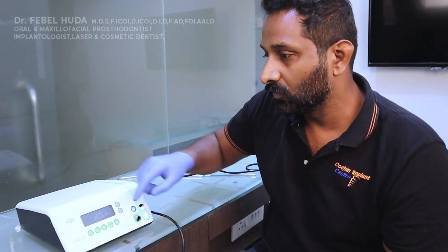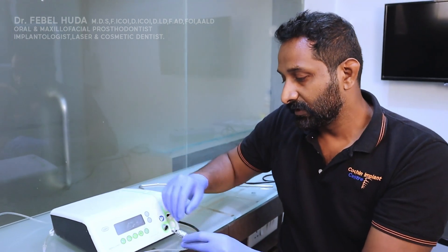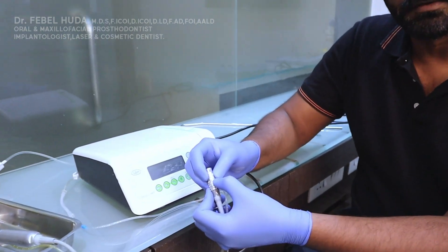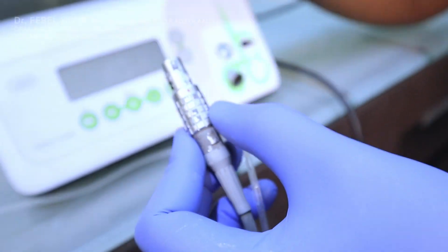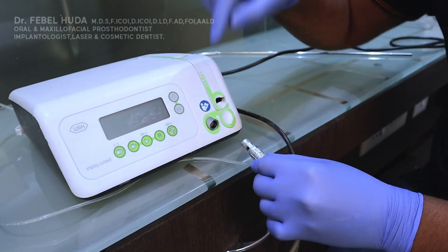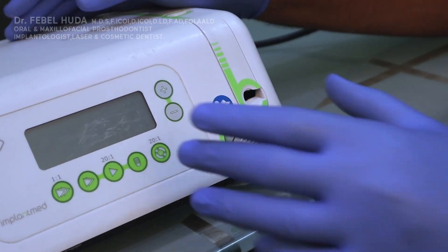On this side you have two components that connect. First is your handpiece cable. You can see there's a red marking on the handpiece cable, and a corresponding red marking on the port — you coincide them and push it in without changing the position.